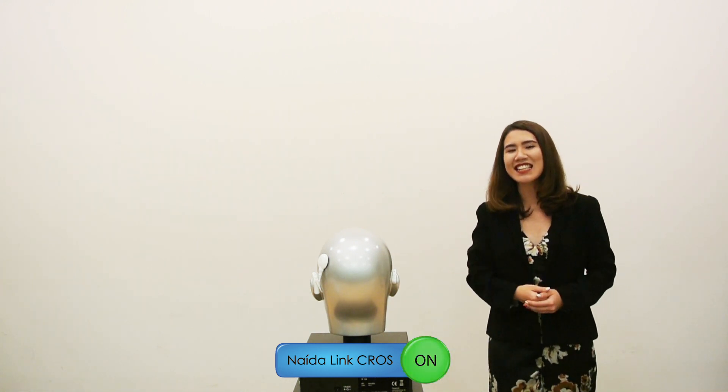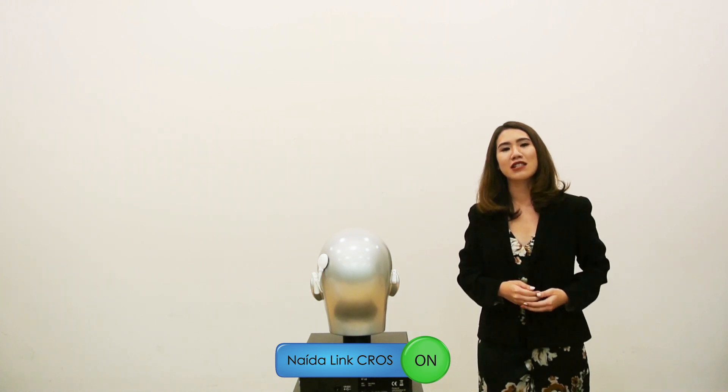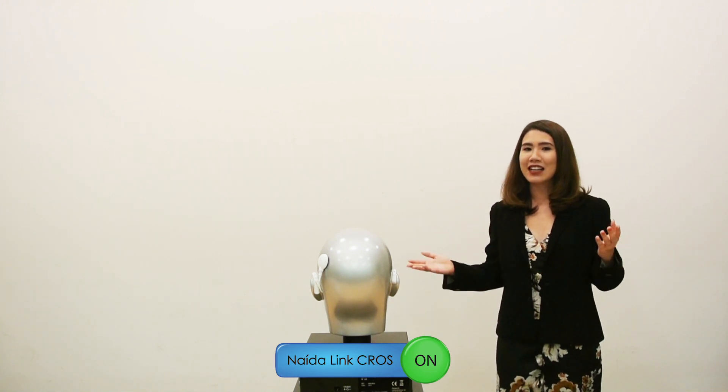Now, with the CROS switched on, it is easier for you to hear my voice as sound is picked up from the right ear and transmitted to the sound processor on the left ear, making it easier for you to hear me no matter which side I speak from.